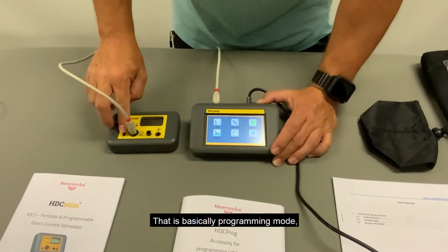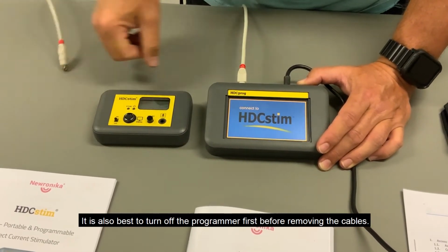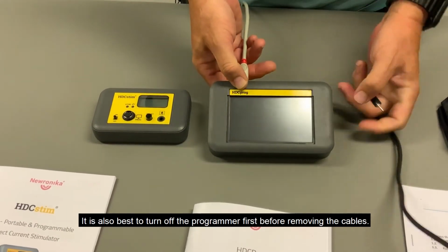That is basically programming mode. Turn off the device and remove the cables. It is also best to turn off the programmer first before removing the cables.